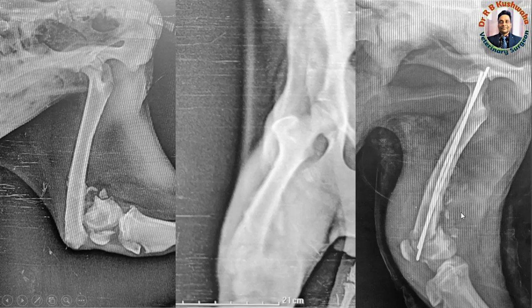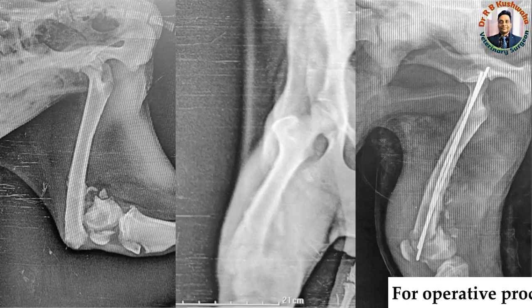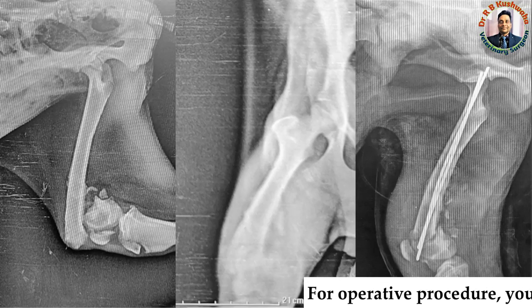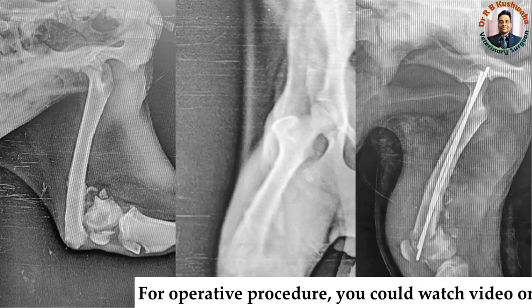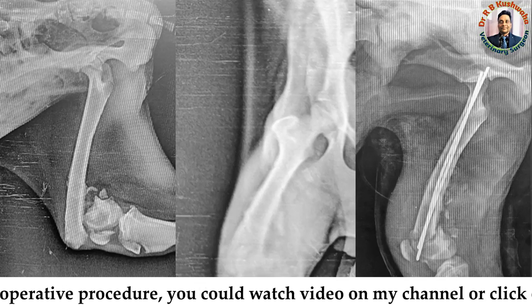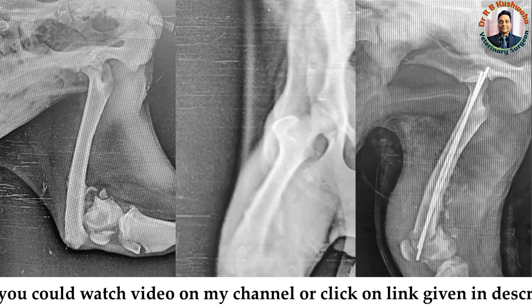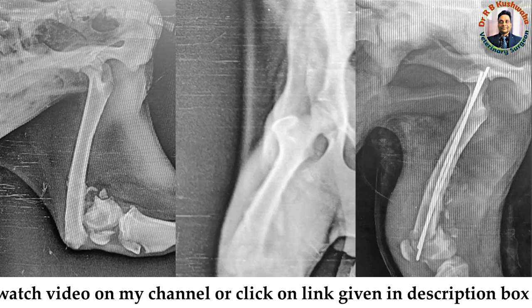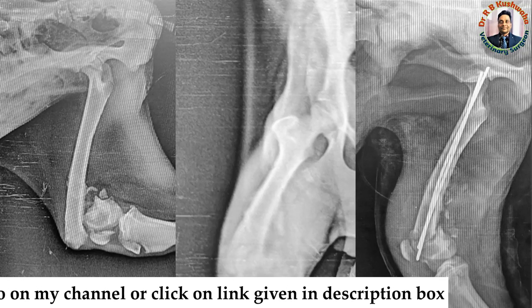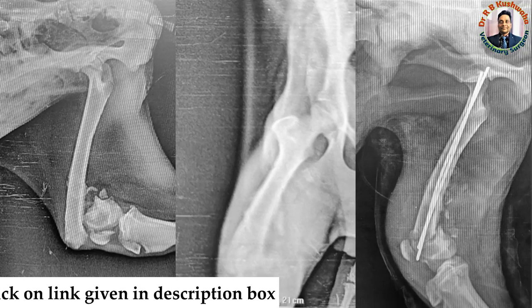Overall, in both cases the fixation and alignment of the femur bone is very good. A video of this dynamic cross pinning procedure has already been uploaded to my YouTube channel, and I have provided the link so you can go and watch it.